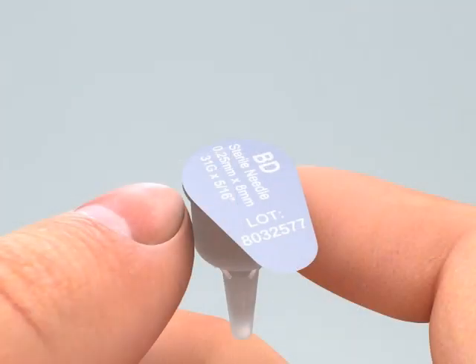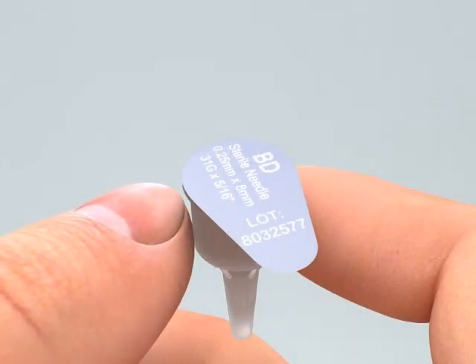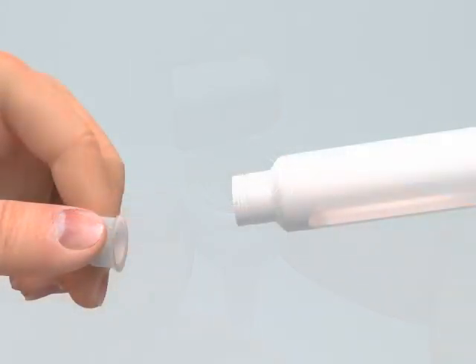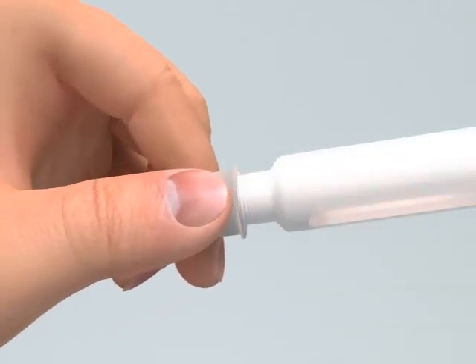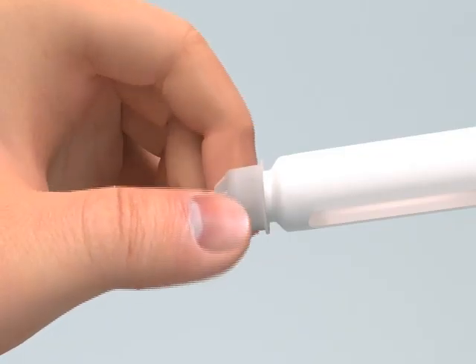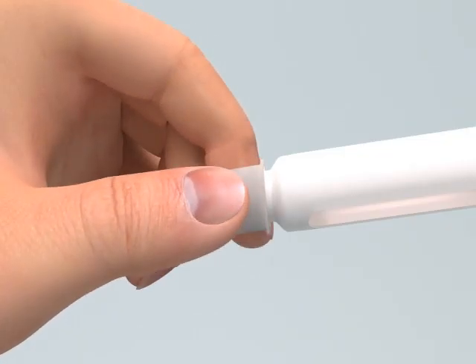For each injection, you will need a new needle. Remove the paper tab from the back of a new pen needle. Holding the cartridge holder, push the pen needle unit with the outer needle shield on onto the pen. Then screw the threaded hub of the pen needle onto the cartridge holder as shown. Be careful not to over-tighten.